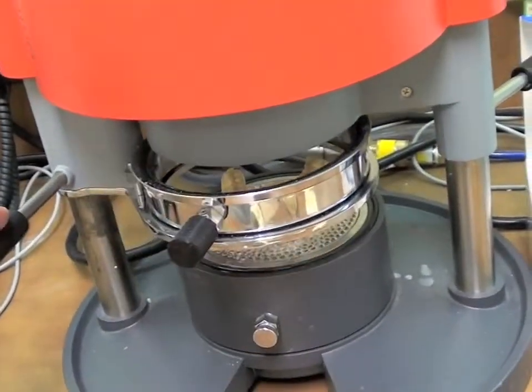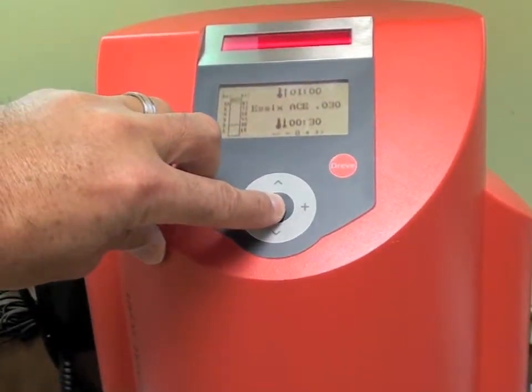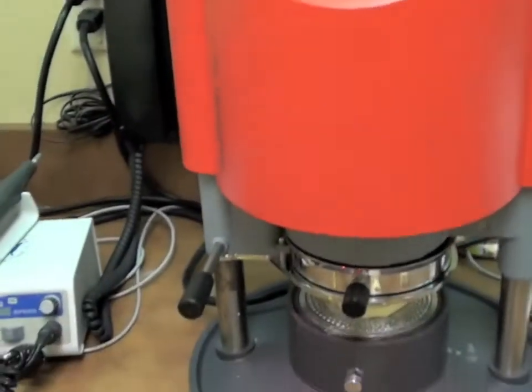The barcode scanner programs the time and air pressure required for a consistent outer plastic tray.